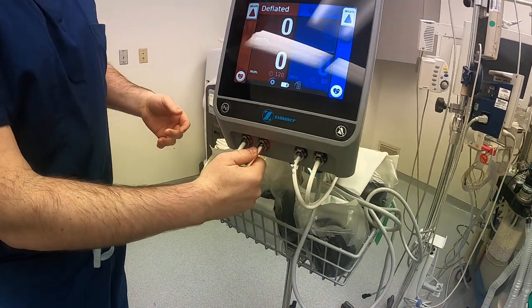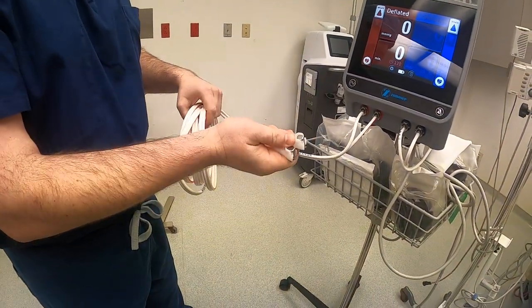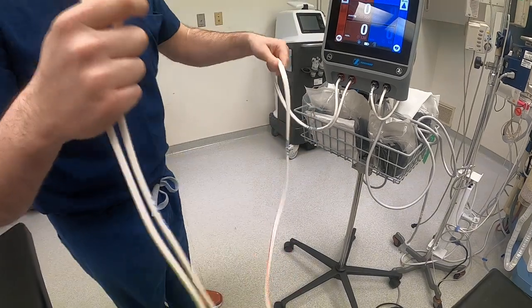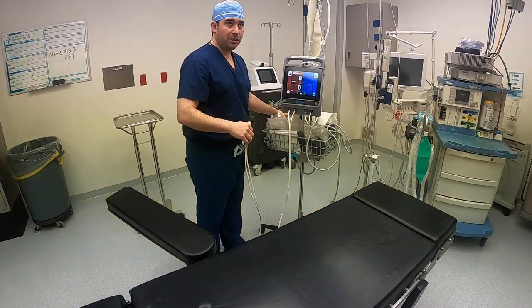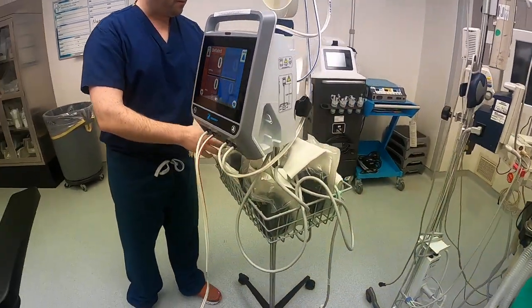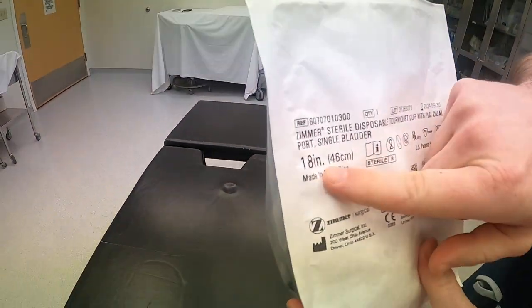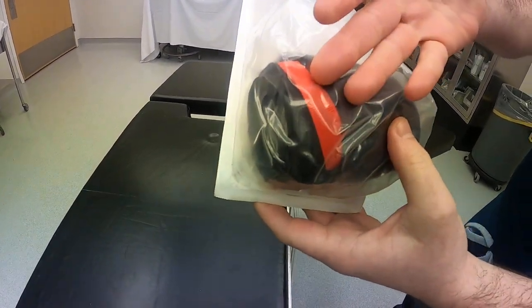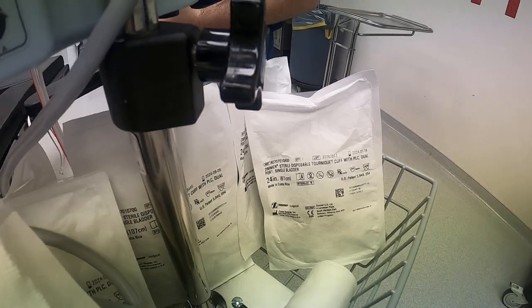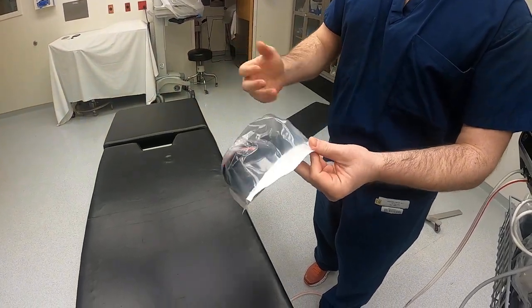Make sure the two leads are plugged in properly. After the tourniquet is put on, these two leads need to be plugged into the tourniquet — the last thing you want is for the tourniquet to go up when it's not secured. Loosen this up and grab the tourniquet. Different sizes are stored here — for today we're going to use an ankle tourniquet, 18 inches, found on the back. They're color-coded: red for ankle, purple for thigh, with green and yellow for sizes in between.